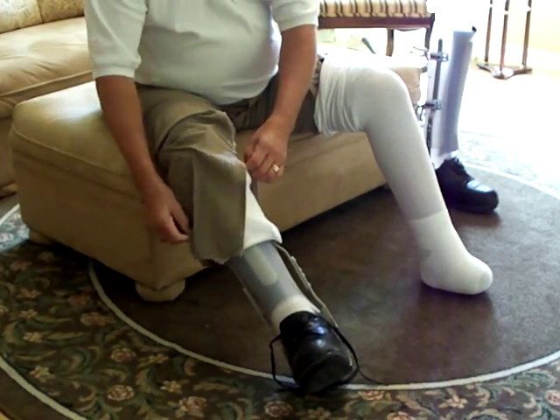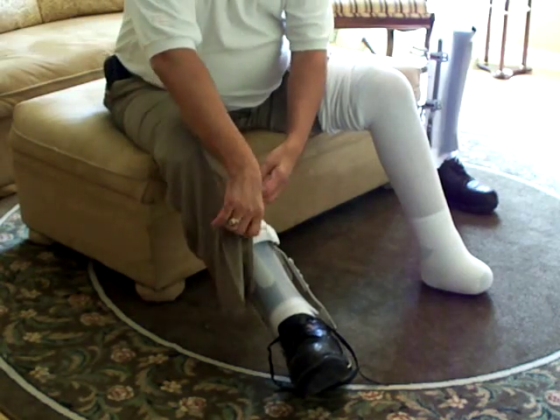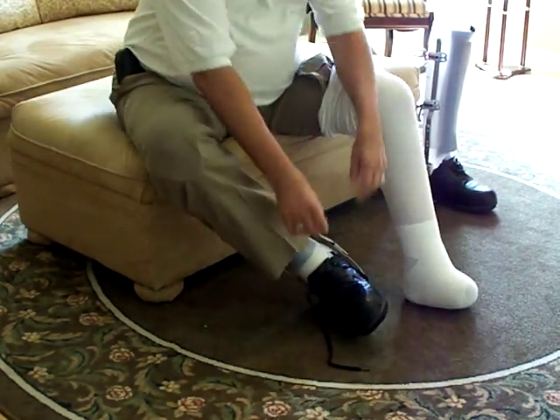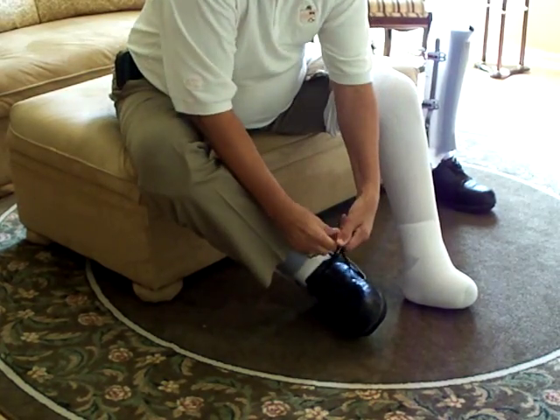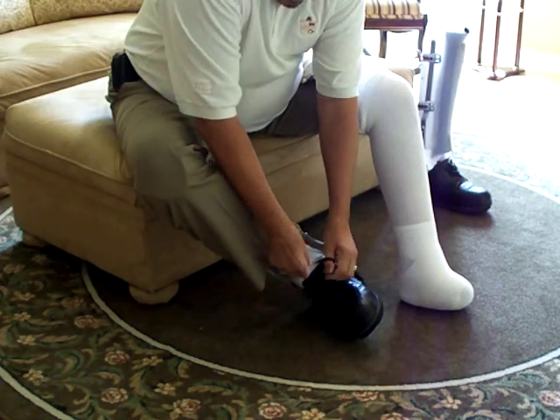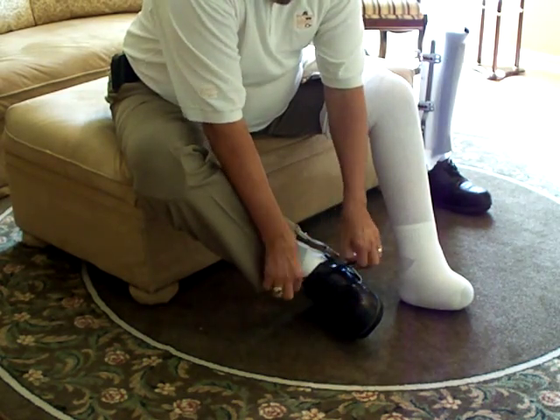These little handy zippers are good on the pants — it helps them get over the boots very easily. And then, presto, you're done. Tie the shoe, and that's pretty much it. But I have two of them, so I have to do this twice.